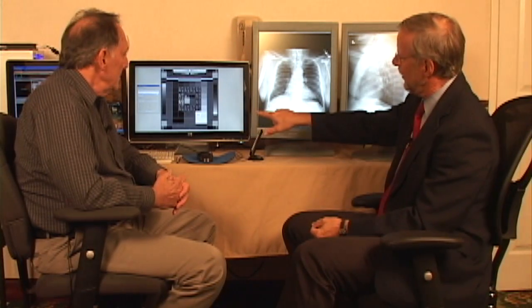And then we can maybe put it on the CD and insert it into the PACS system or any other test system, so as a test image, and then go through the whole thing, bring it up in the viewer, right? And then we should see the same as if we would not use the software, right?